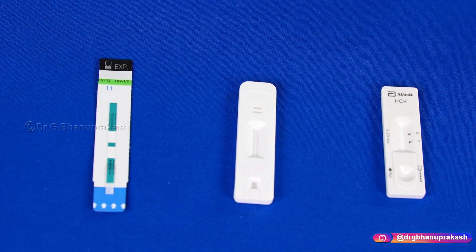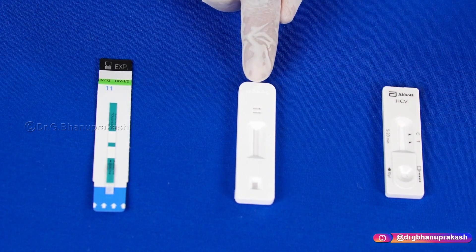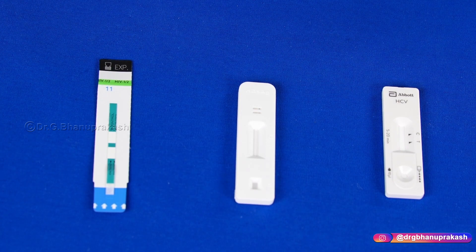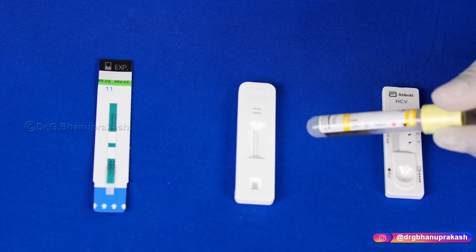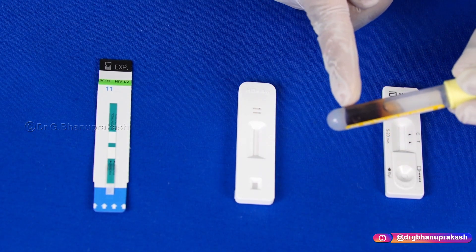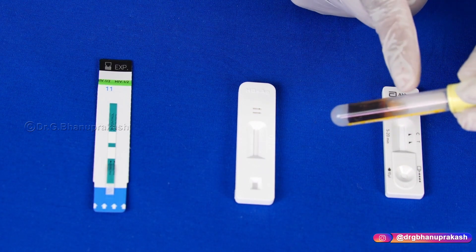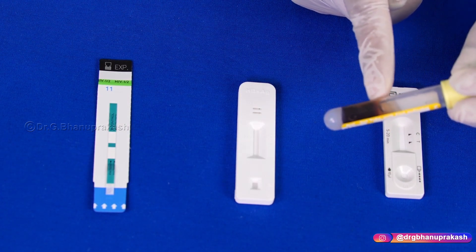These are the basic viral markers: this is for HCV (Hepatitis C virus), this is for HBsAg (Hepatitis B antigen), and this is the HIV kit. You have to collect the blood in special containers called vacutainers. These yellow color containers have no additives inside, so the blood clots and a layer of serum forms. You need to put the tubes aside for at least 20 minutes for proper serum to form.